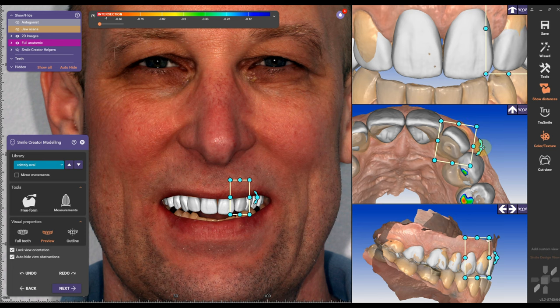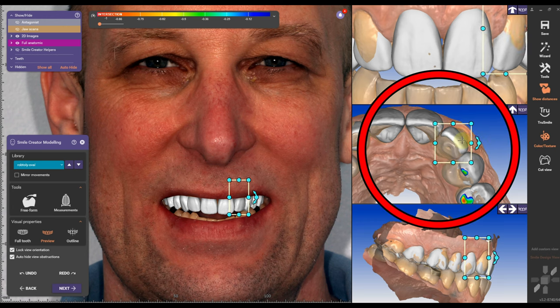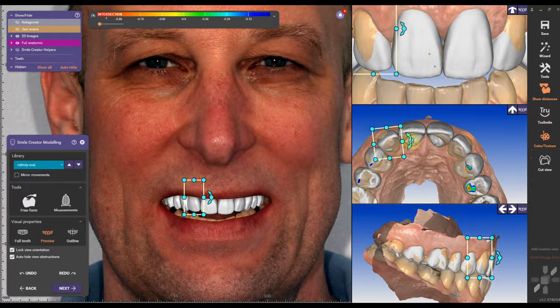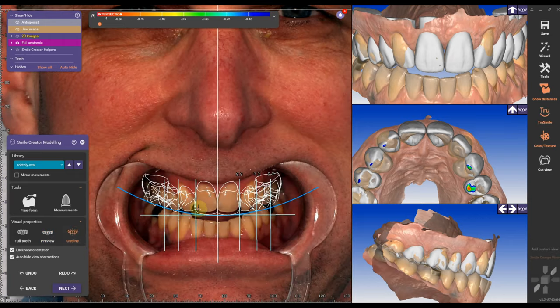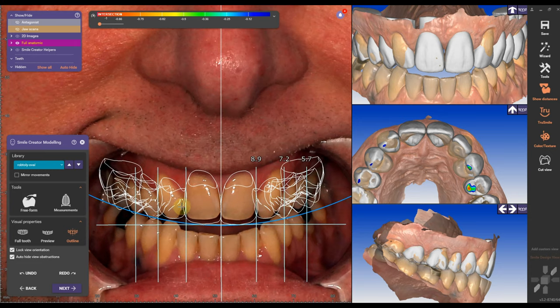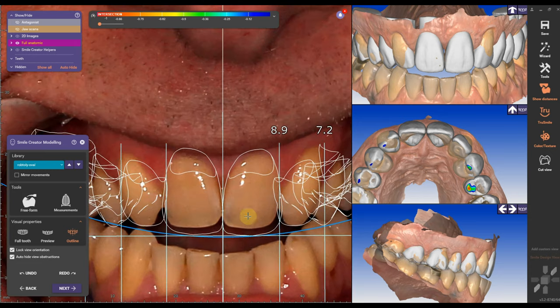Then I'm going to tilt the laterals. The laterals are usually a little bit tilted to the distal — for the distal part, you can naturally see less. Same with the canine: if you look at the canine naturally, the distal part is usually completely gone and you are not going to see it.